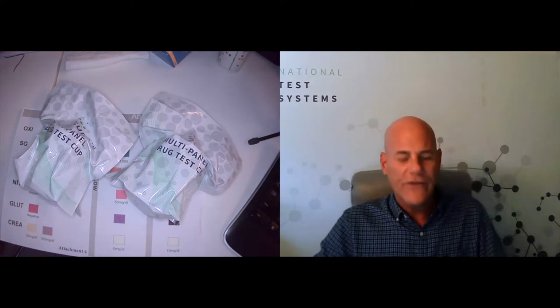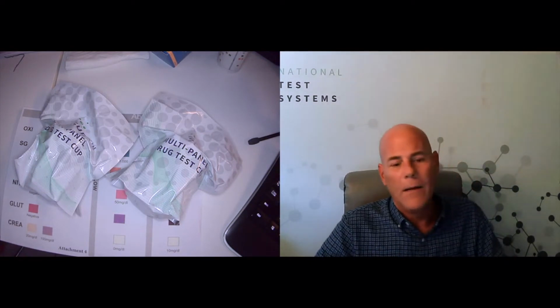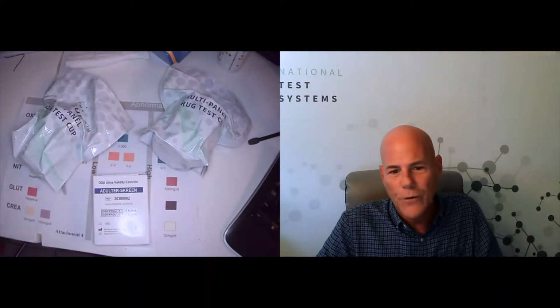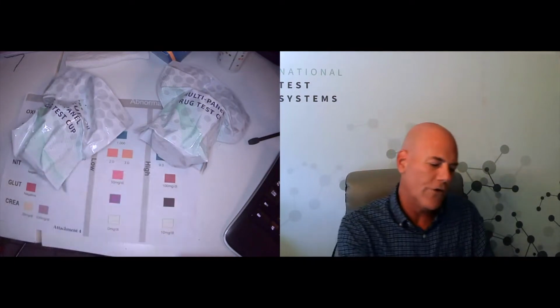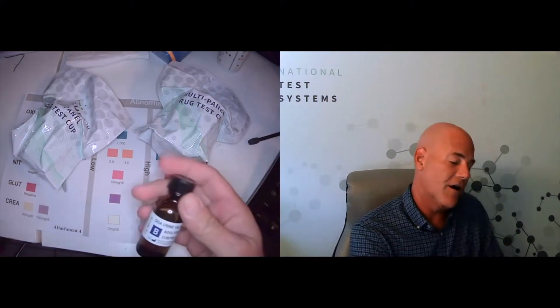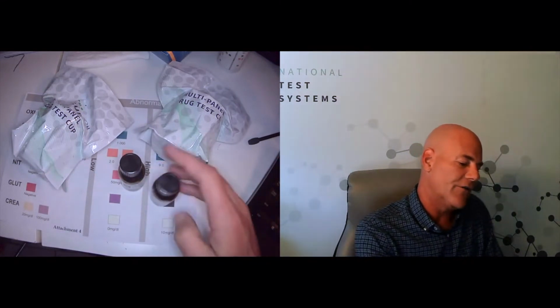The way we're going to test these today, and that's going to bring us to attachment number 2, is we're using a set of quality controls. Most of you who are in the healthcare space or are familiar with CLIA know a little bit about quality controls. External quality controls are basically artificial urine, synthetic urine, spiked with known values of certain substances.